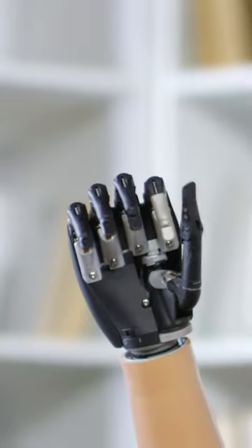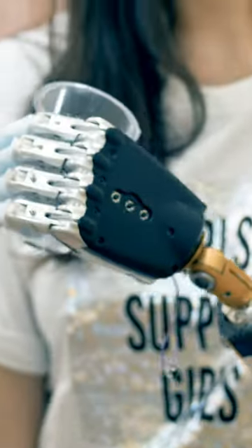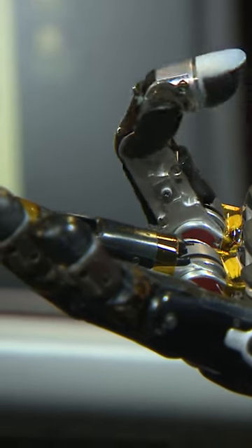If somebody's using a prosthetic limb, they can control it typically by generating muscle signals and we can measure that muscle activity and translate it to the prosthetic arm.